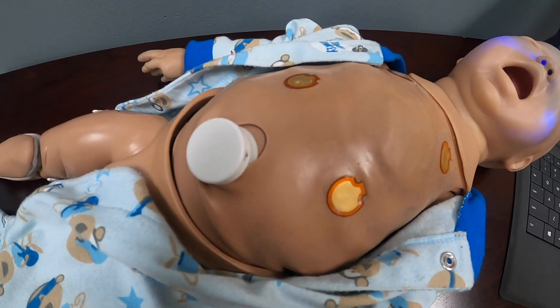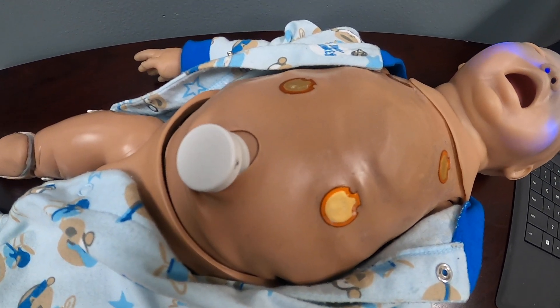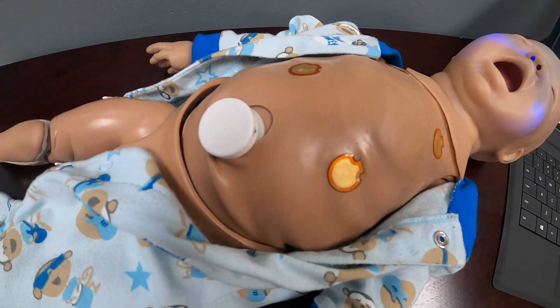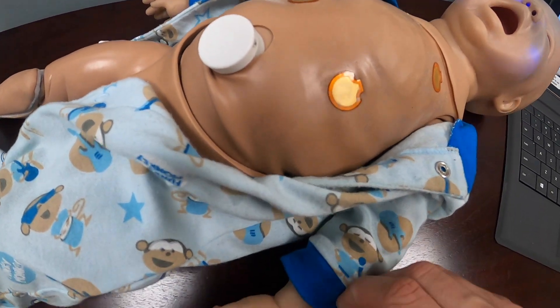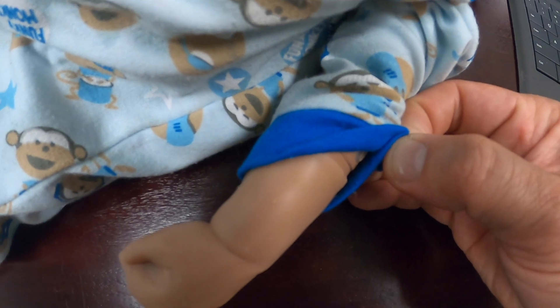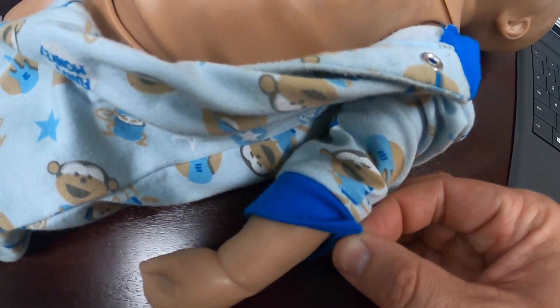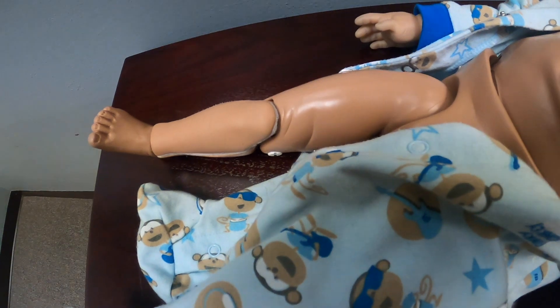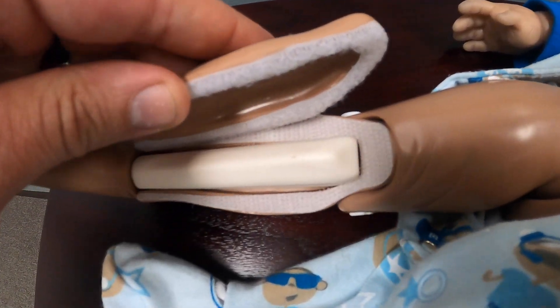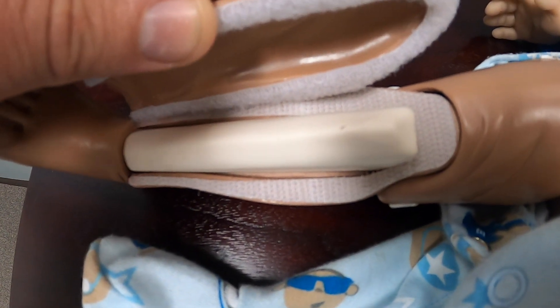Using these pads, it can be placed on a four-lead EKG and can also be put on cardiac defibrillation pads. It does have a spot for the umbilical cord, which can actually pulsate once you put the attachment on.